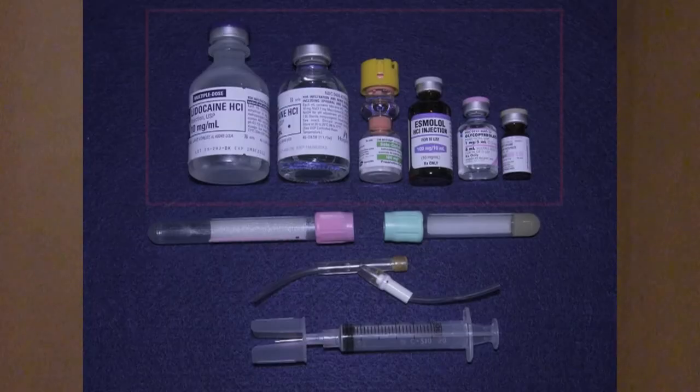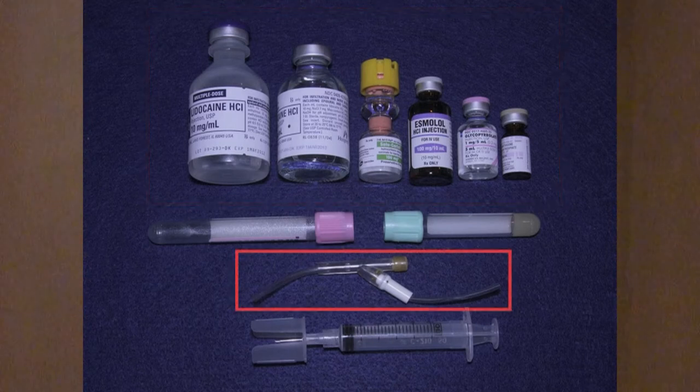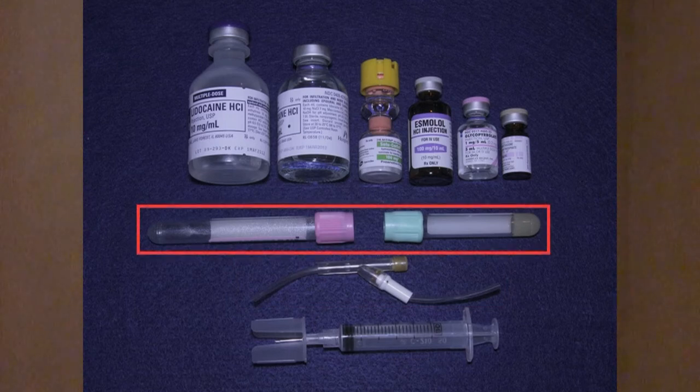MedMate is an all-purpose safety needle designed for activities including: one, drawing up medications from vials; two, injecting medication into injection ports; and three, transferring blood specimens into specimen tubes.